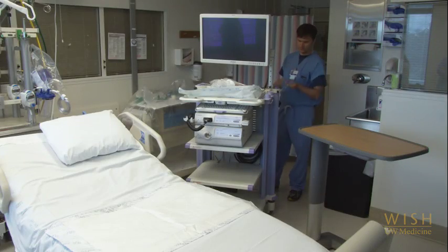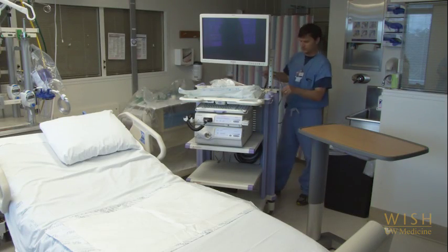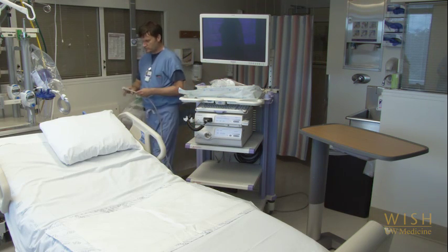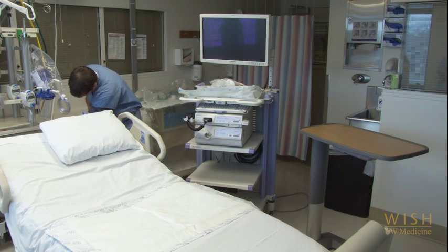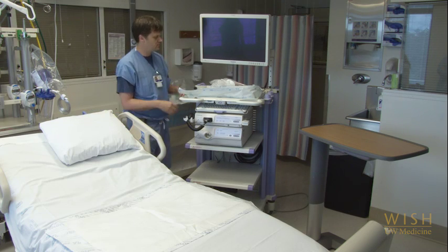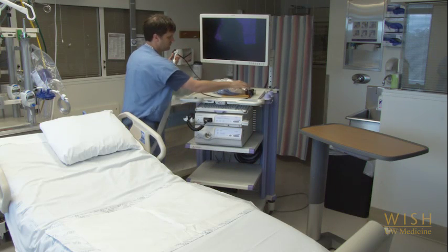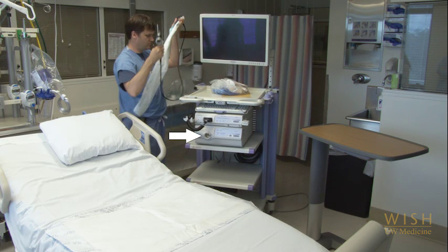In the room, make sure you have ordered appropriate sedation medications so these will be ready by the time you are set up for your procedure. Use the cord on the back of the bronch cart to plug the cart into the wall socket. You'll then need to plug in the bronchoscope itself. There are two steps to this: first, plug the bronchoscope into the lower unit and then connect the top unit.